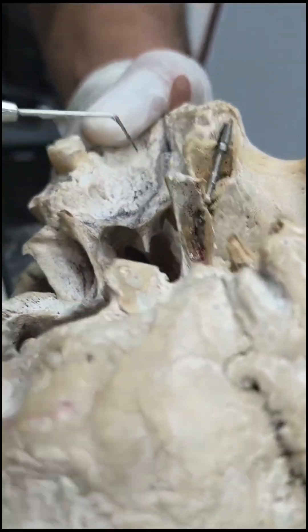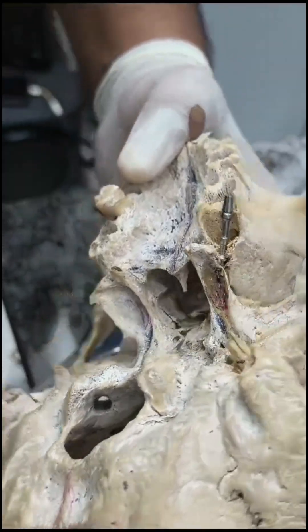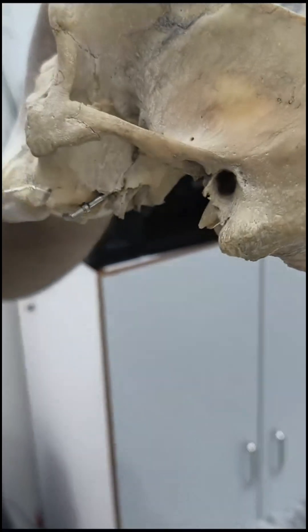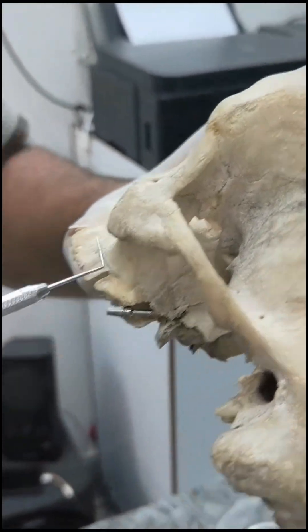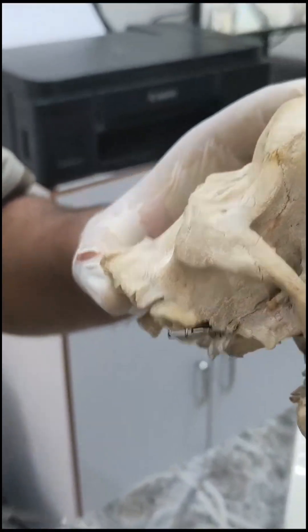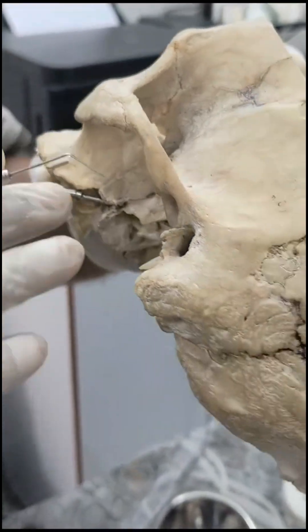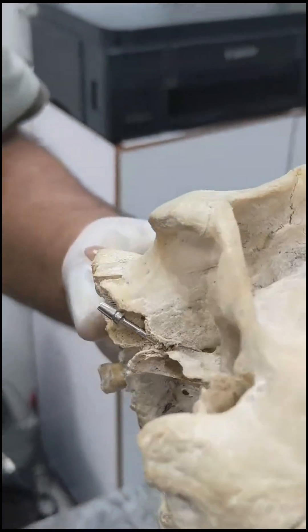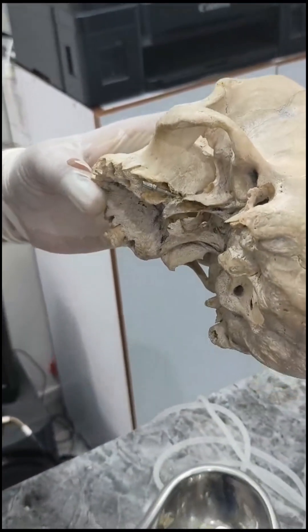The importance of pterygoid implants is that many times we don't have bone in this area, so the pterygoid implant gives us anchorage for preventing cantilever forces, and a full-span construction can be done here.